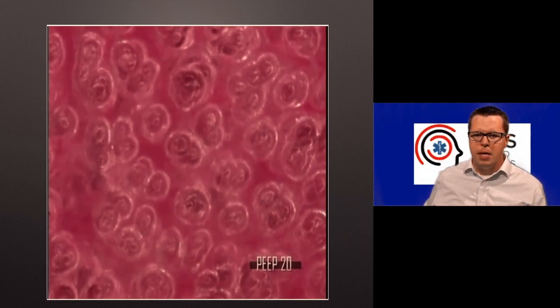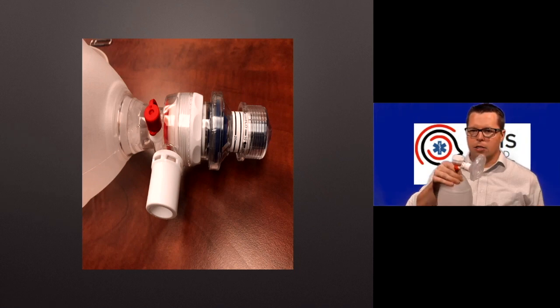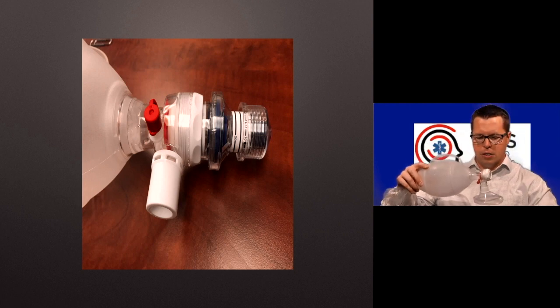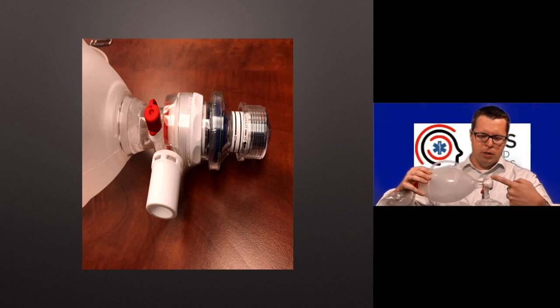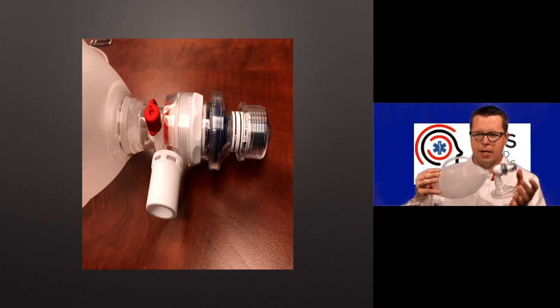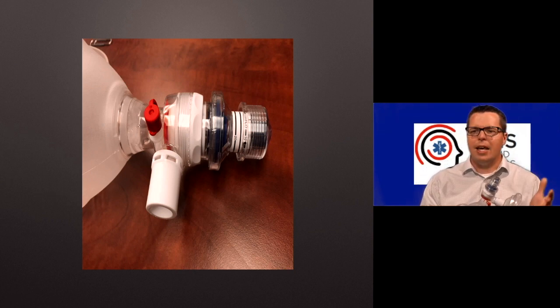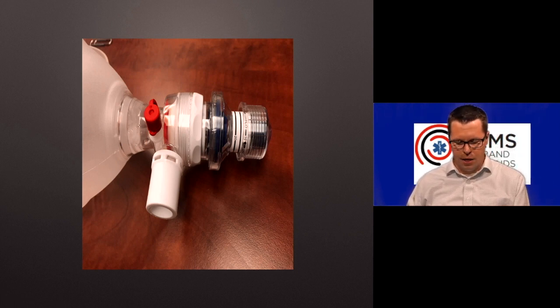How do you do PEEP on one of these bags? Well, quite simply, you put a PEEP valve on the exhalation port of the bag. Remember how I said before, air is blown in through here, goes into the patient, swirls around and does whatever. When you release pressure here, then air will flow back up preferentially. It hits this valve that won't let it flow back into the reservoir bag and tries to go out the exhalation port. If you put something that adds resistance to the exhalation port, then whoosh, gas can't escape until it reaches a pressure of, in this case, it's dialed to 10. So 10 centimeters of water, and then the thing opens. It's literally just a spring with a piece of rubber on the end of it.